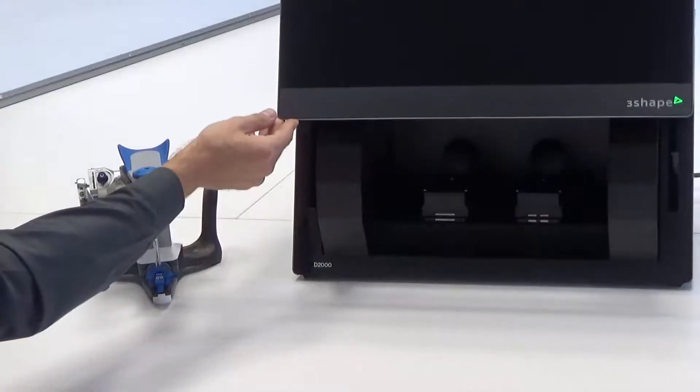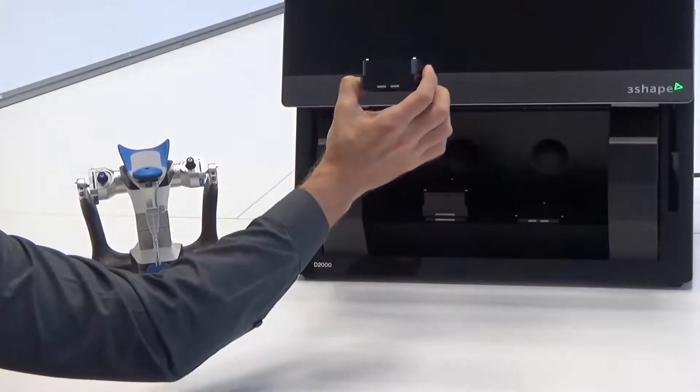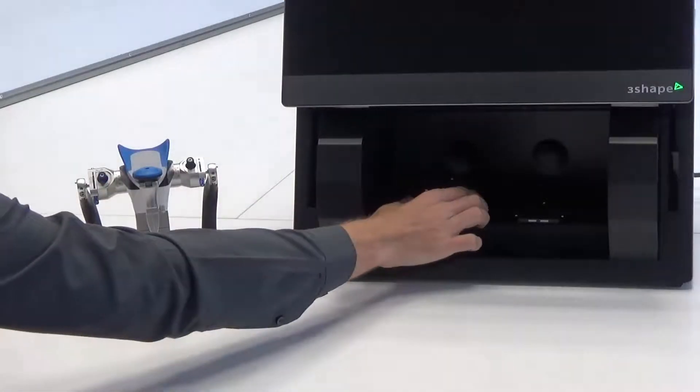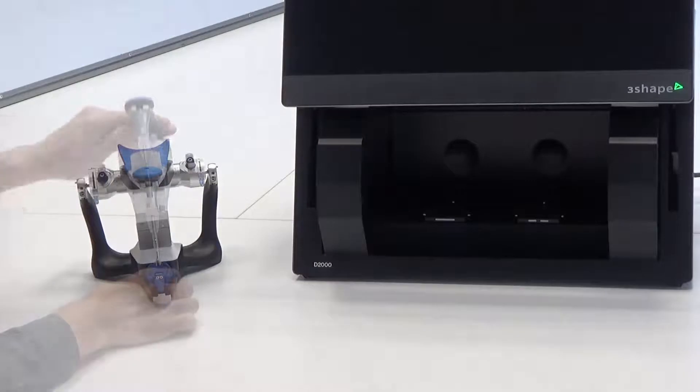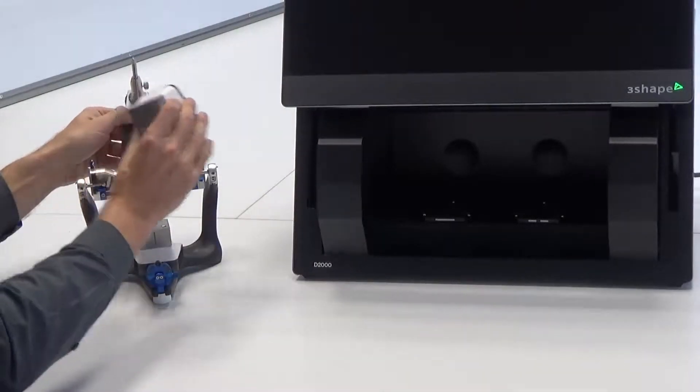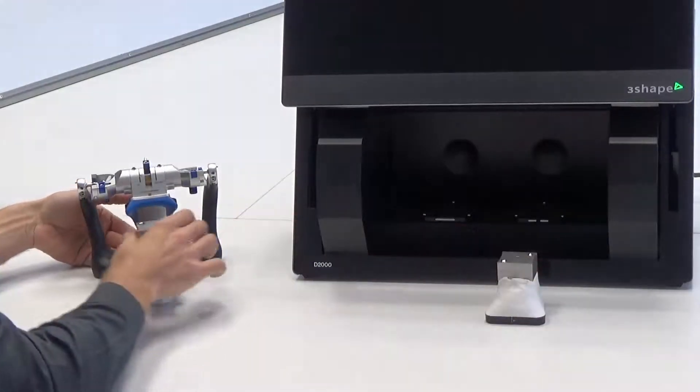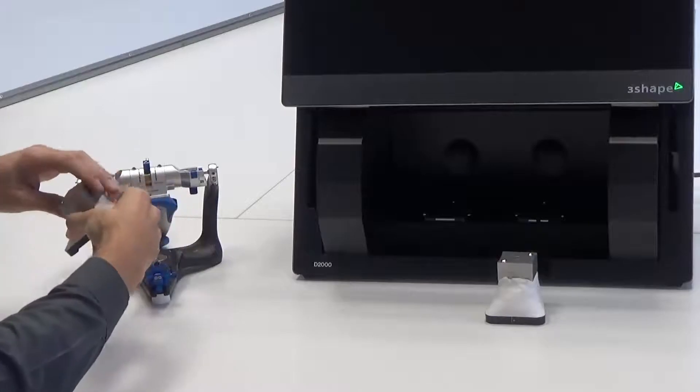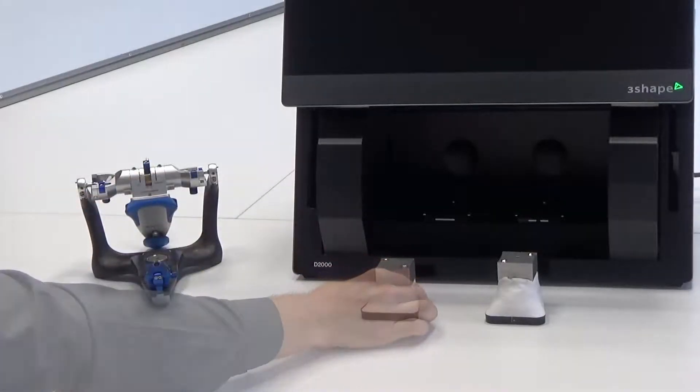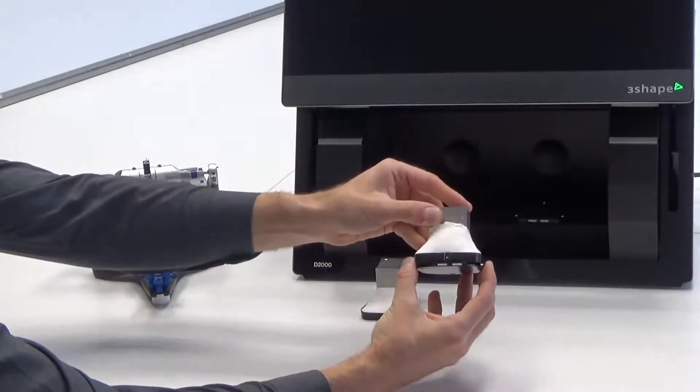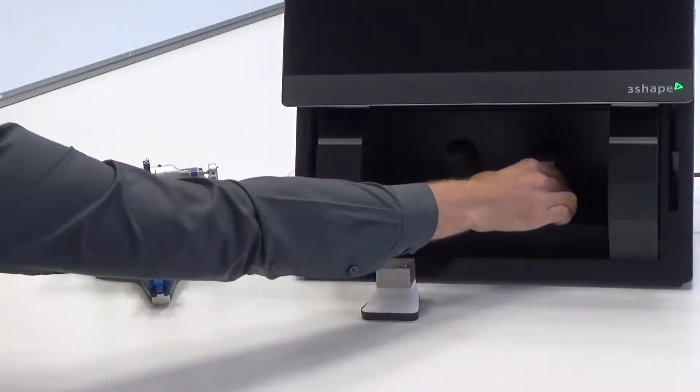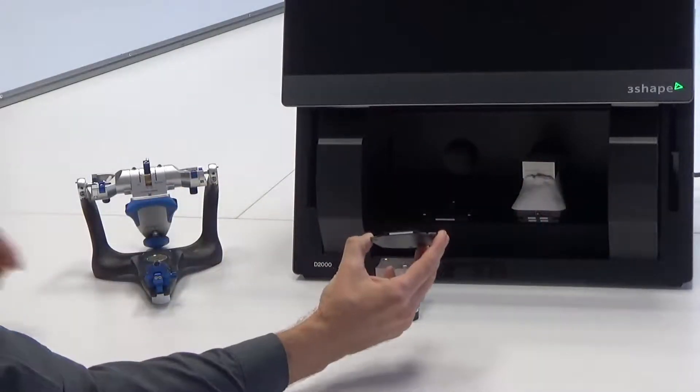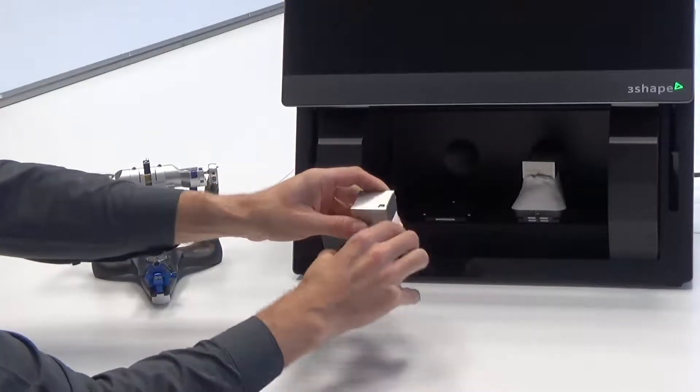Now open your scanner and remove its height adapters, or adapter if you do not use the D2000. Then remove both mounted parts of the Occlusal Transfer Calibration object from the articulator, and set it on Transfer Plates for that articulator. Set upper part on the right side, and the lower part of the calibration object on the left side.